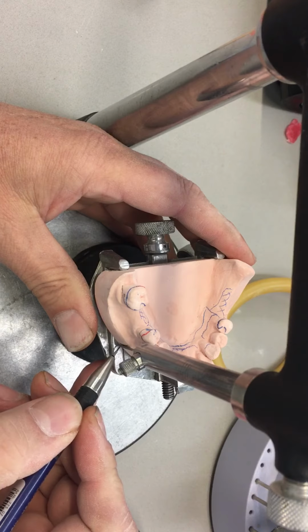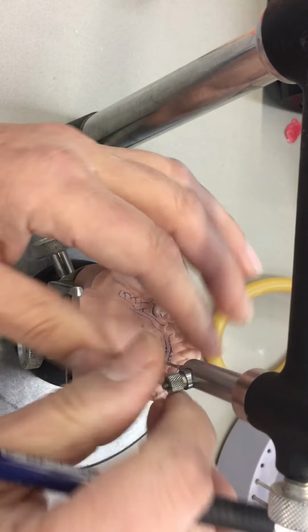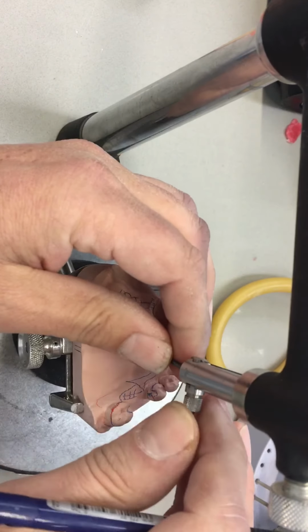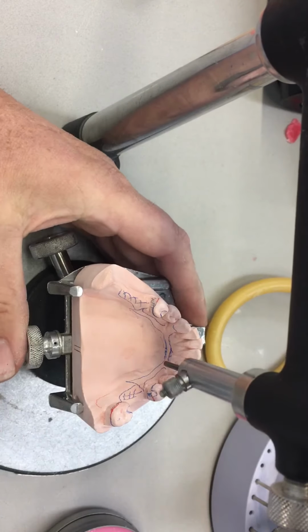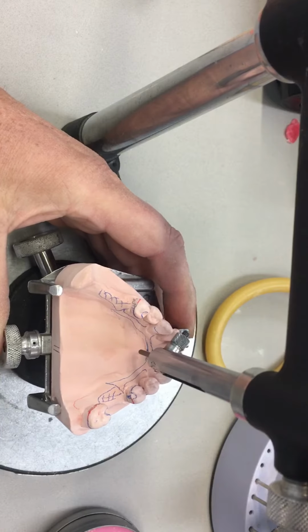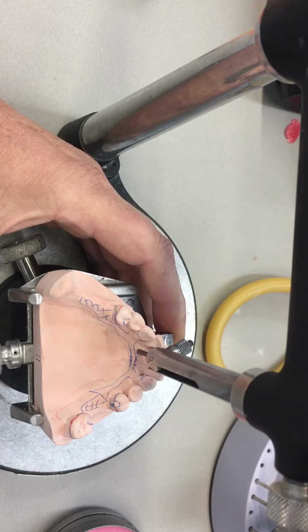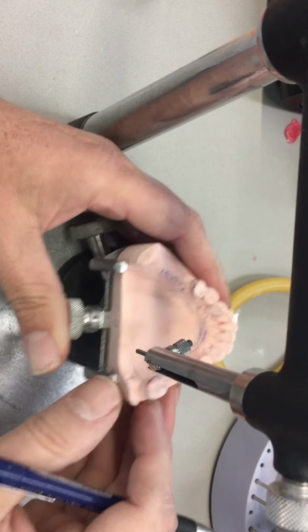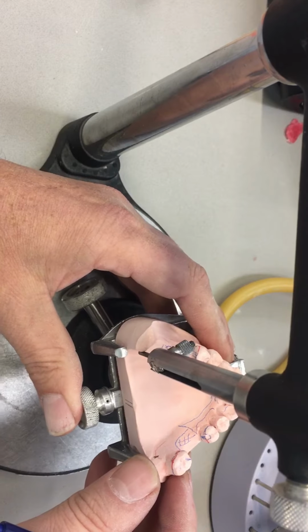Carefully, not to move. And this would be the easiest way to tripod the model, so that we can relate the model back to the surveyor at this path of insertion. The other way, more traditional, is 3 widely spaced points on the model in the same horizontal position. So I'll mark those 3 points, one in the anterior and 2 in the posterior.